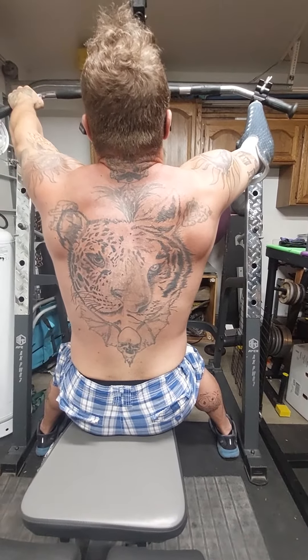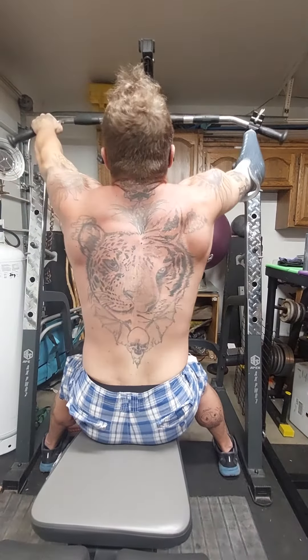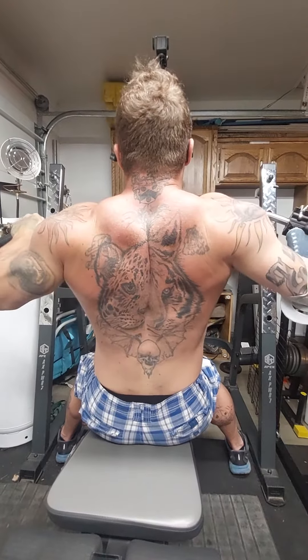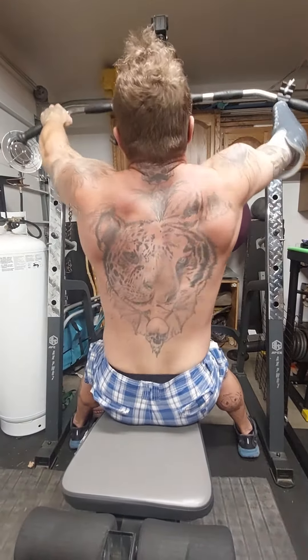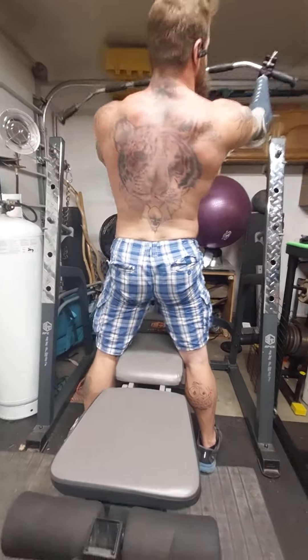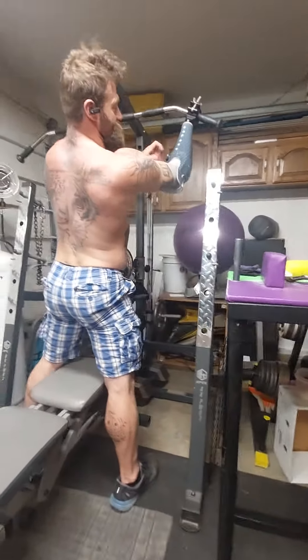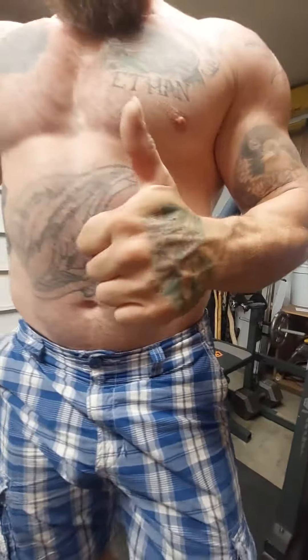It feels so awkward, probably because for the first time it is straight. You're pulling straight. This is just 50 pounds to try and get used to things. Well, I think that's all right. I'll just pop this, pull it out, let the arm go. First workout.